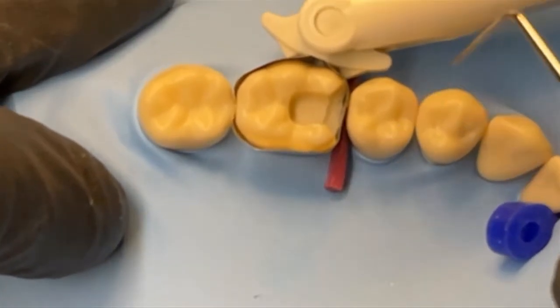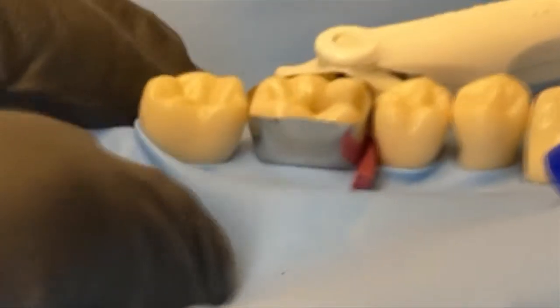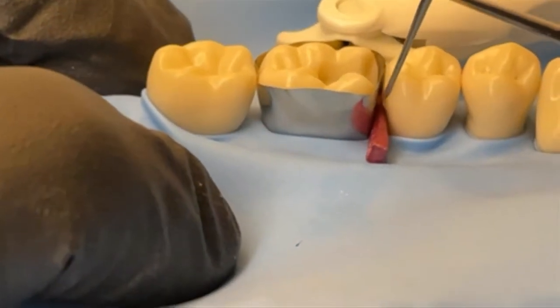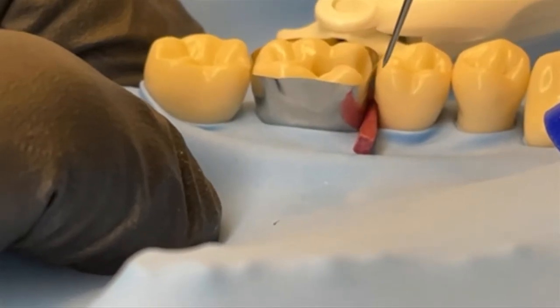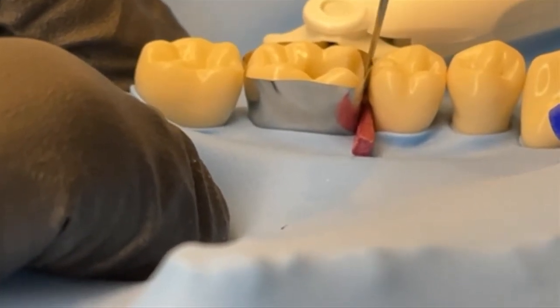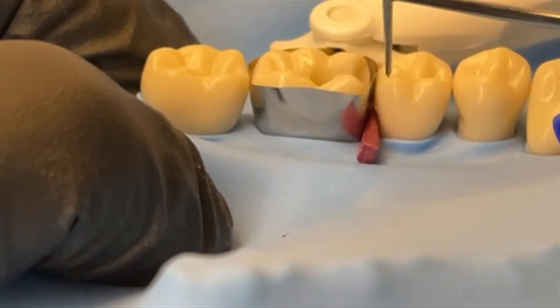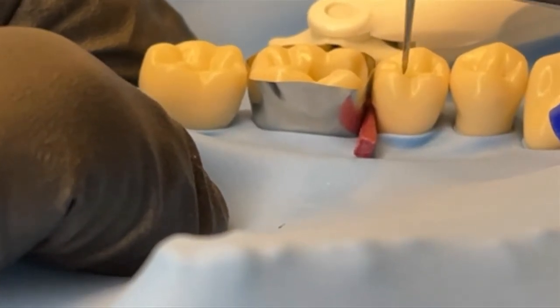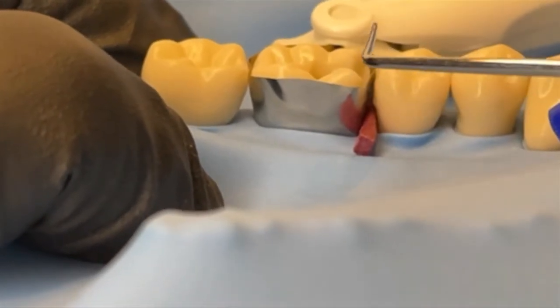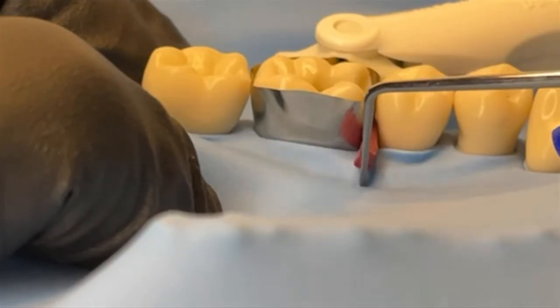Looking at it from the side, the contact point you're going to create is going to be much higher up and flat - much higher than you'd really want. This has a lot of problems. When you finish your restoration, often you adjust the occlusion but it's too high in the marginal ridge area. You polish out the contact point because it's so high up and then you haven't got a contact - or leave it and it's too high. You can get a fracture of the marginal ridge later because it's unsupported without the curve. You can't clean it very well - floss just slides right over, creating a dead space and food packing below.